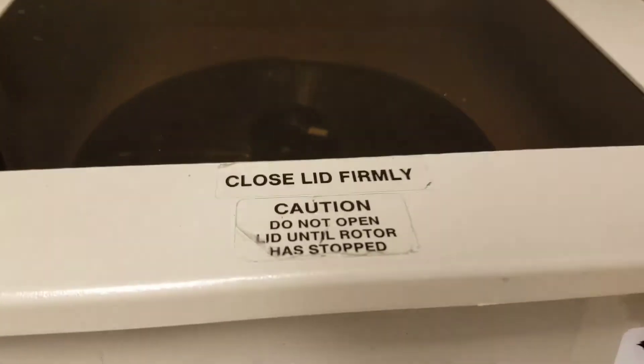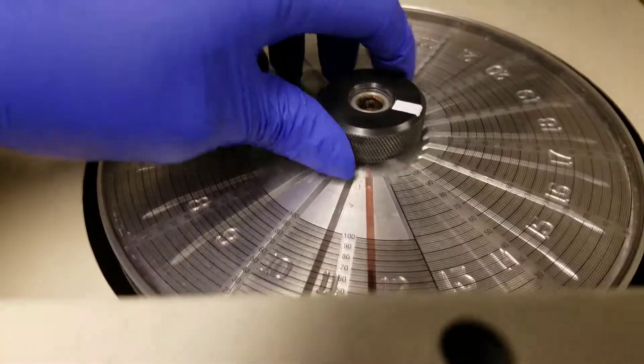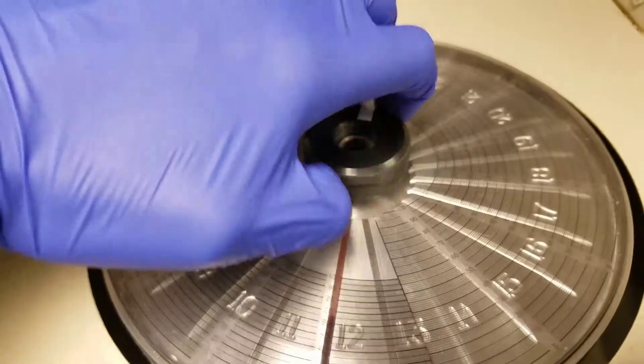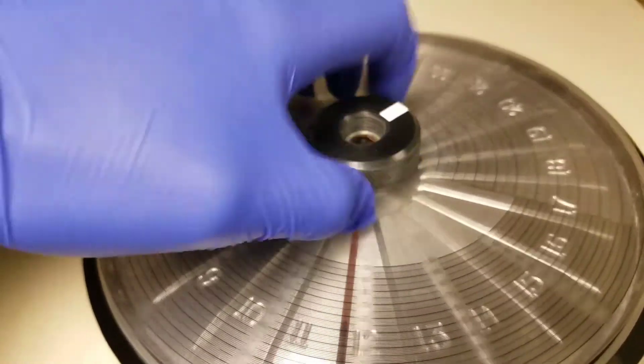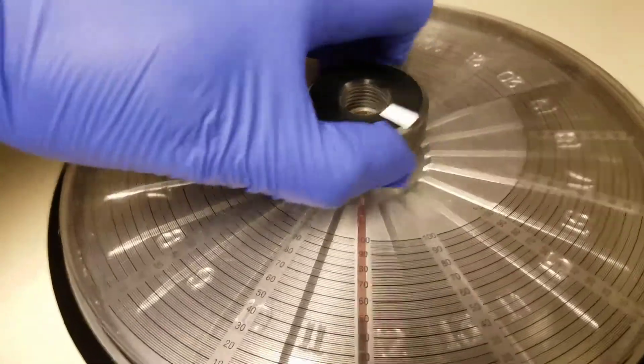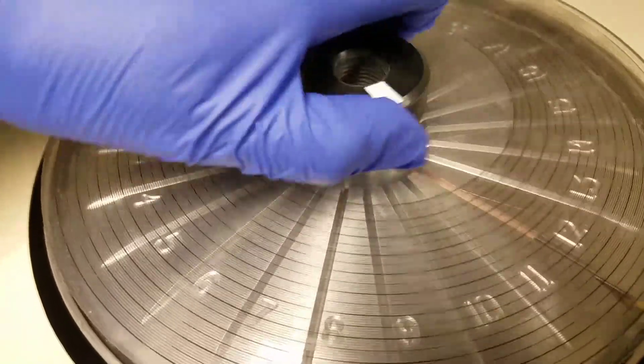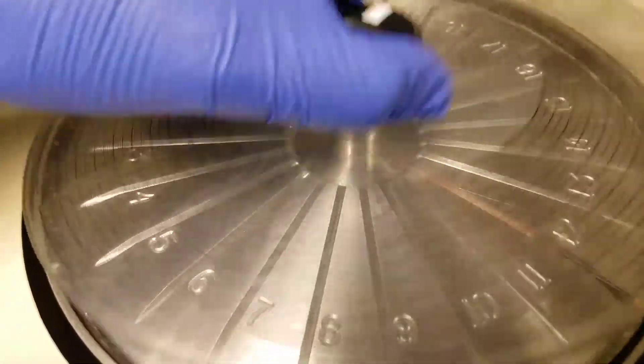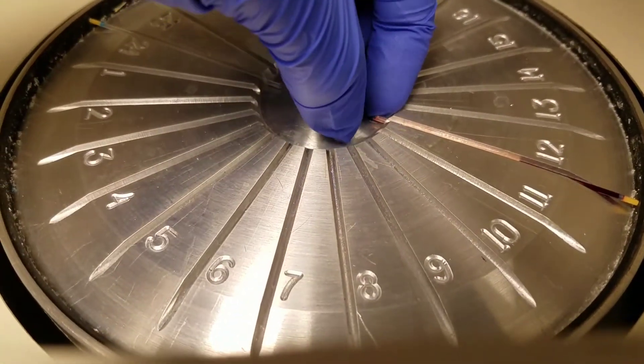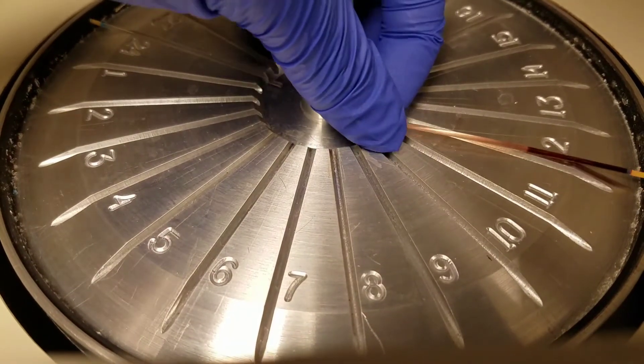It just got done. We're going to pop that lid up. Everything looks good so far. Nothing broke. I feel like these break really easy. Maybe I just hulked out on them. I'm not sure. So get this undone and we're going to use our little paper here. Oh, part of it broke. Well, that's alright.